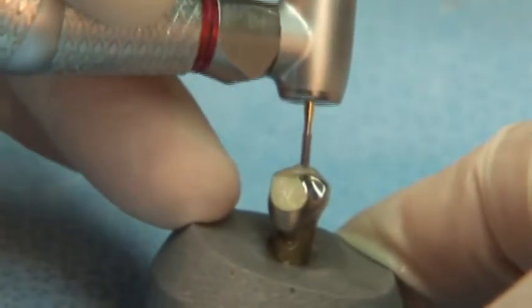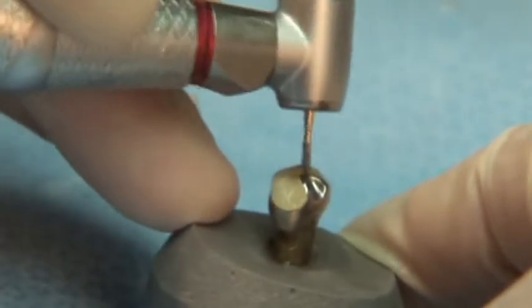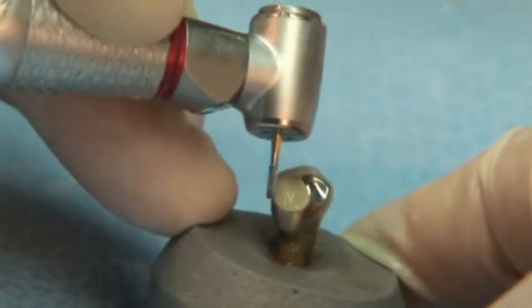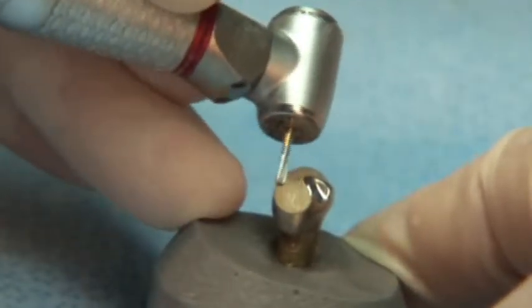The Great White Number Two burr is the ideal shape and size for cutting through porcelain and metal and removing old crowns. The Great White Number Two burr offers enhanced neck strength that greatly reduces burr breakage.